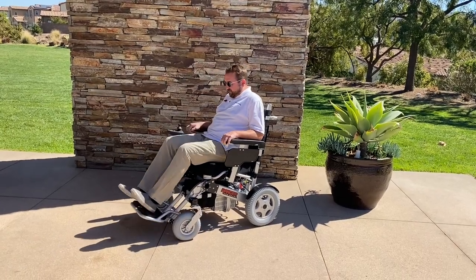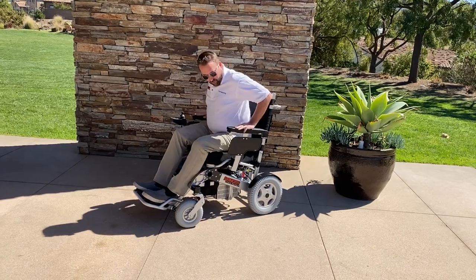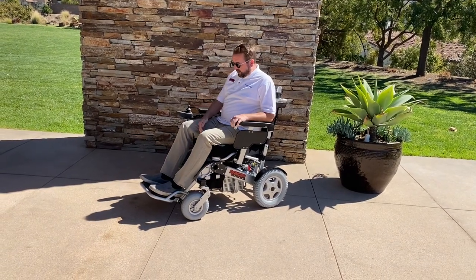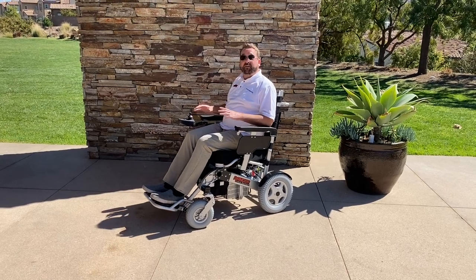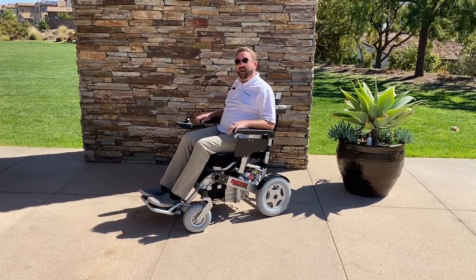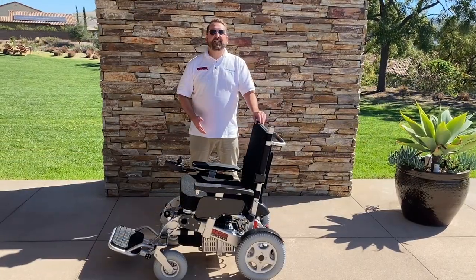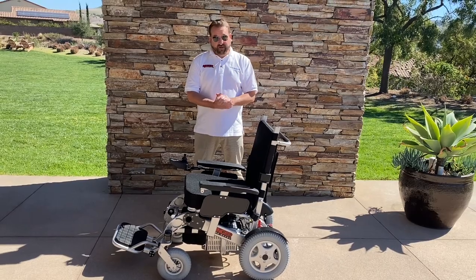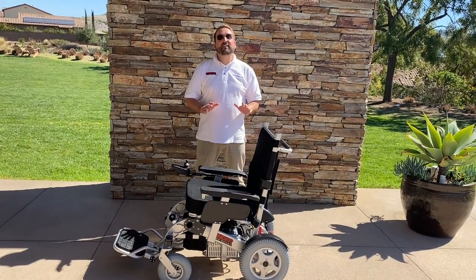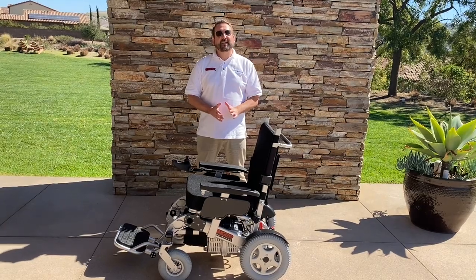It's definitely a lot more comfortable. That's because it's got an extra thick seat cushion, wider armrests, more length between the seat cushion and the footrests, and bigger footrests. Not to mention it's got four air-filled tires giving you a smooth ride. The Beast operates and is as comfortable as a full-size wheelchair, and it folds in one piece. We don't have to assemble or disassemble anything. When it folds it's nice and compact, which makes it easy to transport.